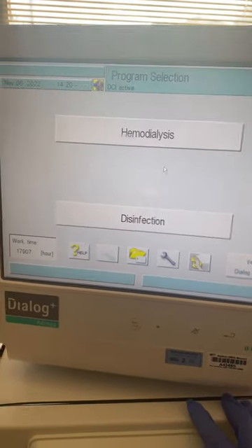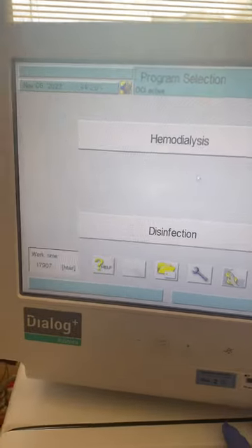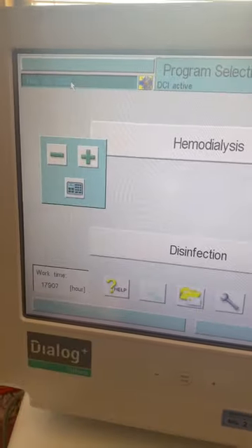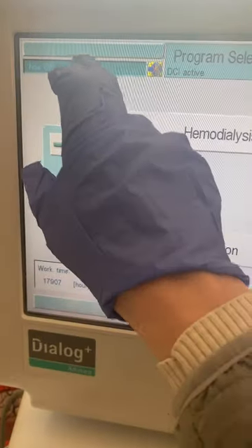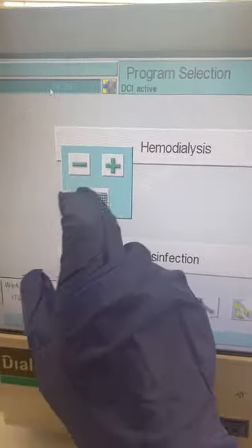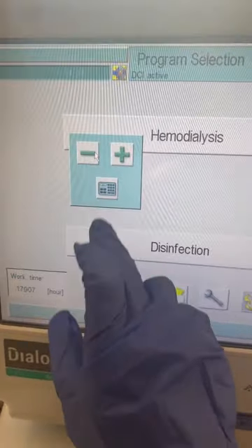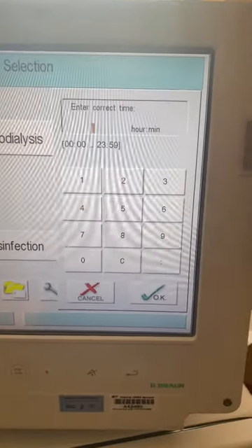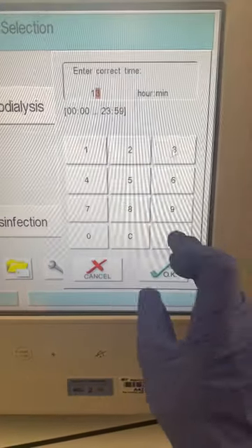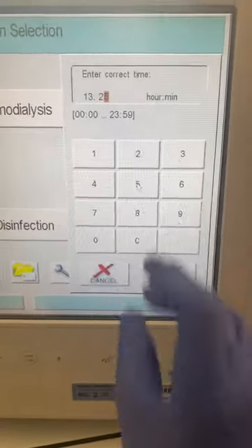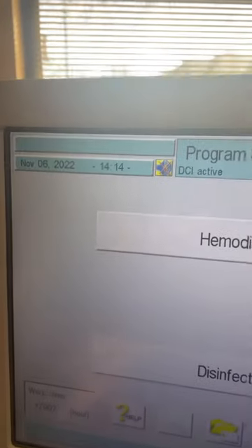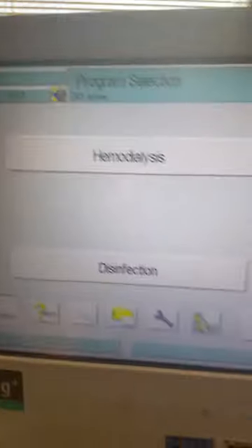And now from this screen — this is the only screen I believe that you can change the date and time. So if I click here, it's asking me if I want to change the date. I'm going to click again and I'm going to change the time. You can key down if you want, but I'm just going to key it in this way. And it is 1:25, so 13:25. Be mindful of military time because you want them to turn on in the morning. And then there we go.